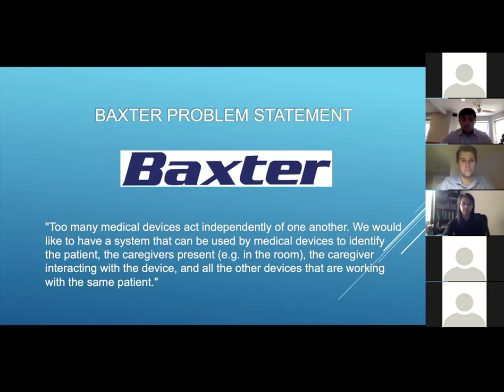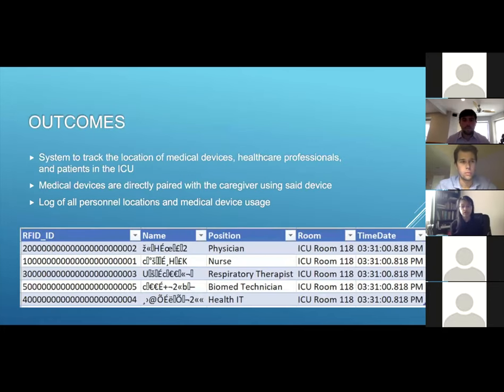We needed to come up with a way to automatically link all clinicians and medical devices to the patient in that particular room. Our system is able to track the location of medical devices, healthcare professionals, and patients within the ICU. The medical devices used are directly paired with a caregiver using the device, and we are able to log all personnel locations and medical device usage to be displayed within a database. Here is a sample of what that database actually looks like.